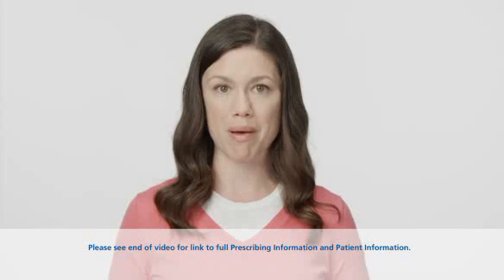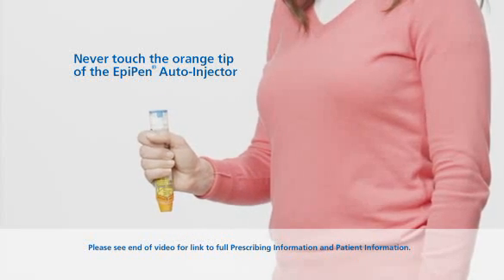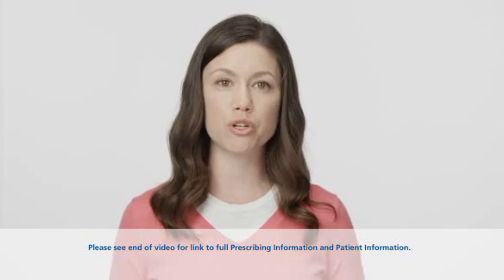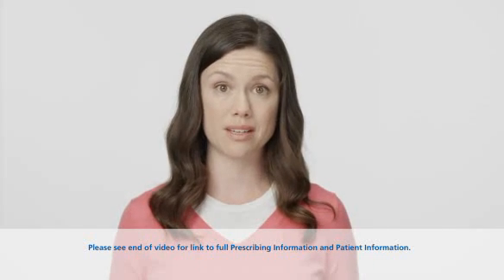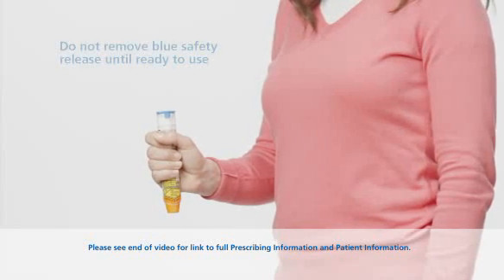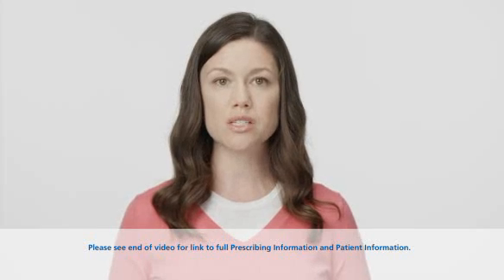You can follow these steps whether you're administering EpiPen to yourself or are a caregiver administering EpiPen or EpiPen Junior. Once you're ready to use the EpiPen, start by grasping the unit with the orange tip pointing downward. The needle comes out of the orange tip, so make sure you never press, push, or put your fingers or hand over it. Form a fist around the EpiPen with the orange tip down, and with your other hand, pull off the blue safety release.